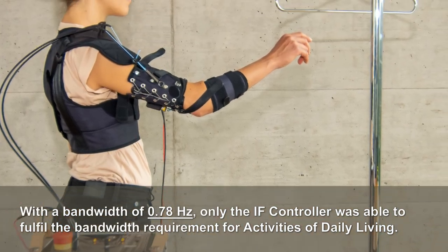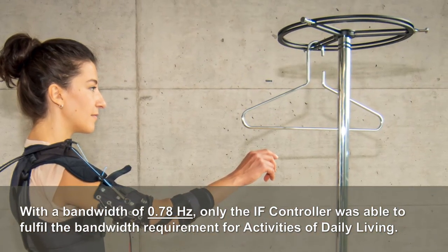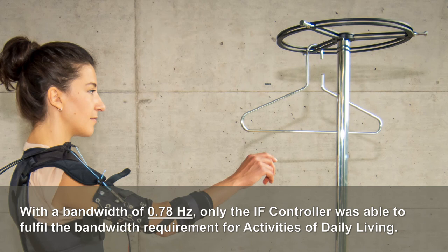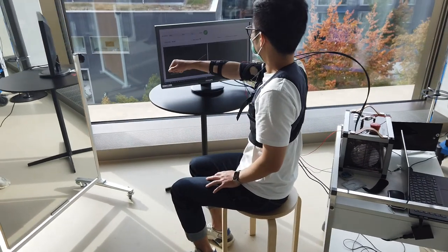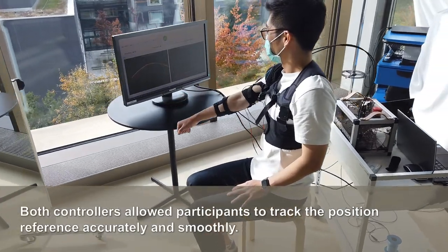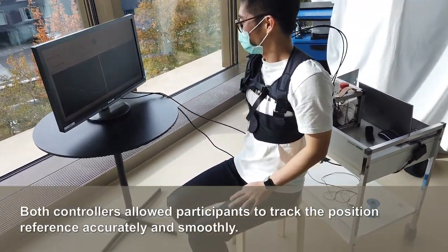With a bandwidth of 0.78 Hz, only the indirect force controller was able to fulfill the bandwidth requirement for activities of daily living. Both controllers allowed participants to track the position reference accurately and smoothly.